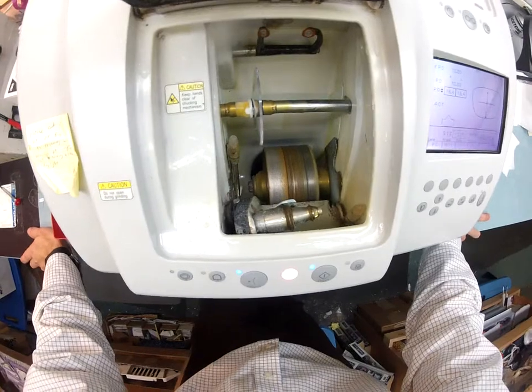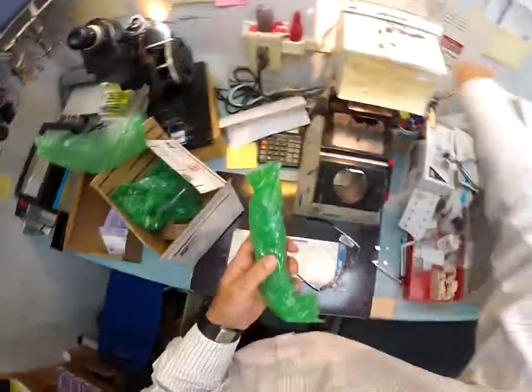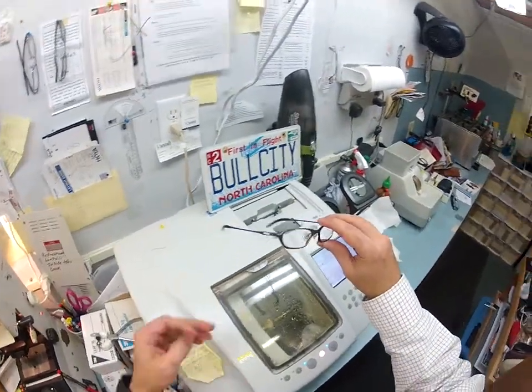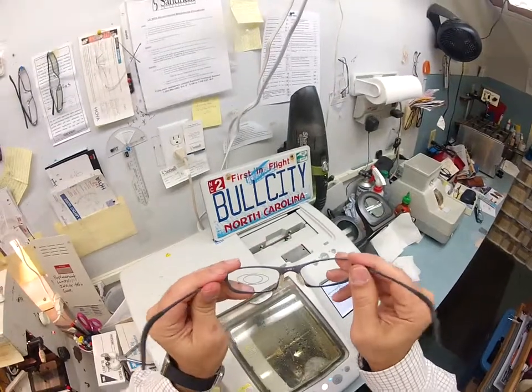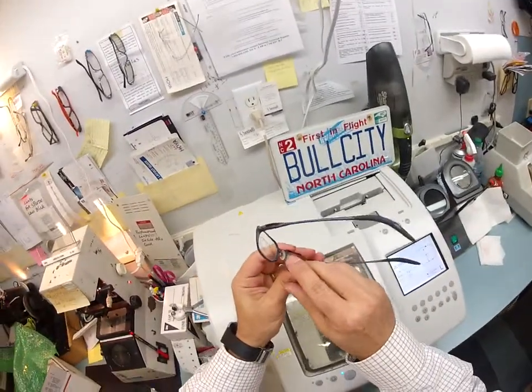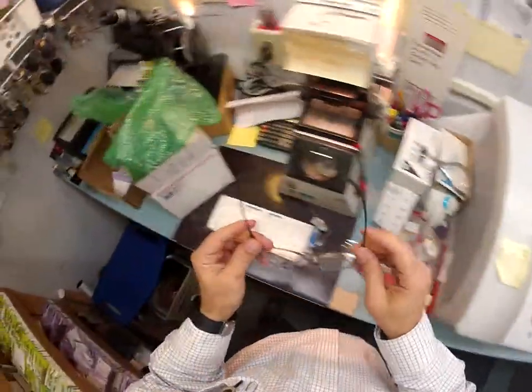Just like before, it is going to trace the lens to make sure it's large enough to cut. I'm going to go ahead and inspect the next frame I will be cutting. Now I will inspect the lenses on the Ray-Ban — you mentioned they just felt loose, and that they are. When I trace, it will cut the actual size of the frame now that I have it here. There is a little bit of inconsistency in manufacturing; these are a few years old. This frame is the Oakley Wire, eye size 5019. Good rubber nose pads, quality spring hinges, good rubber tips — this is a good frame.